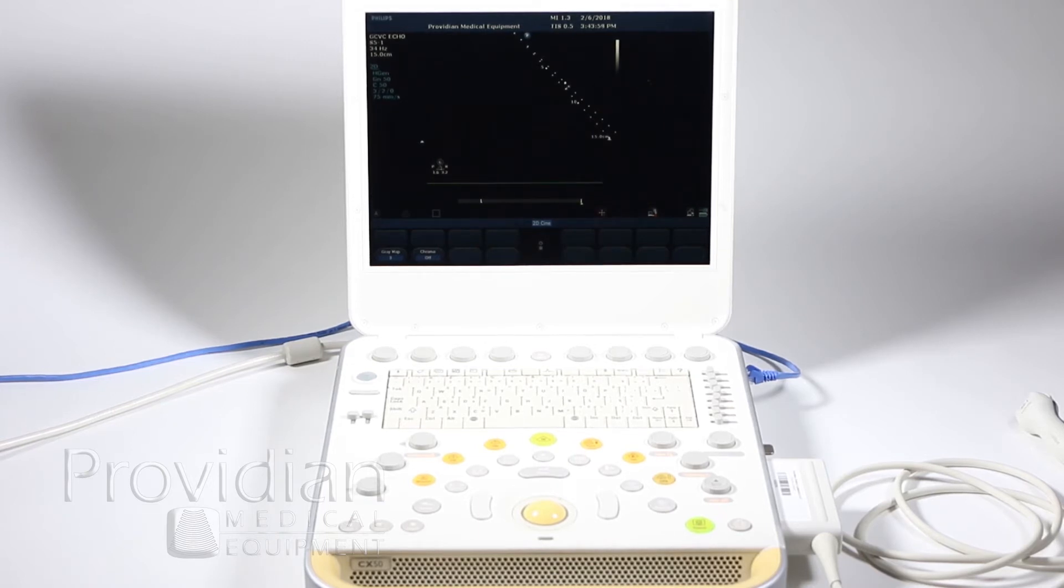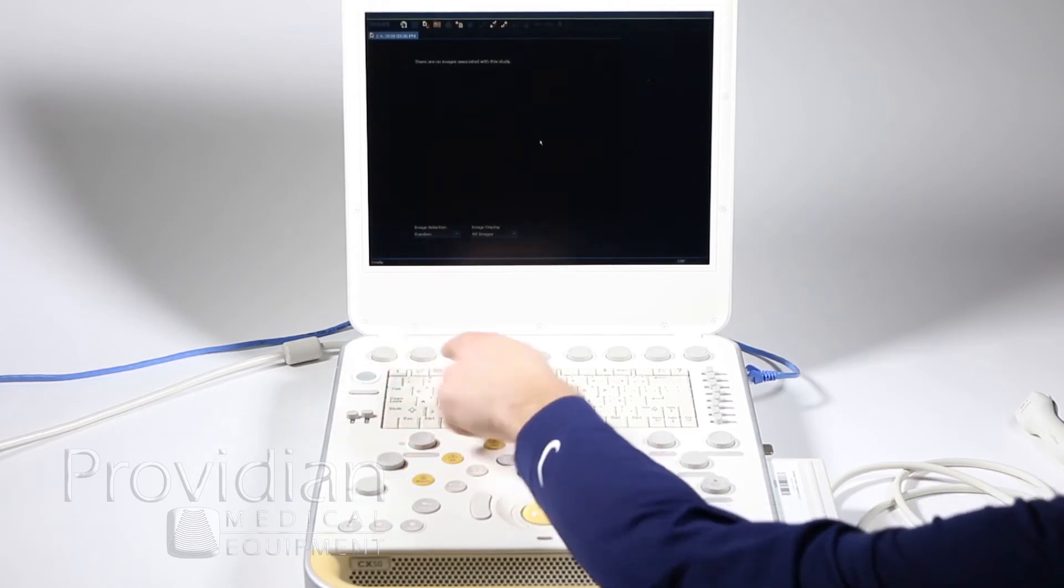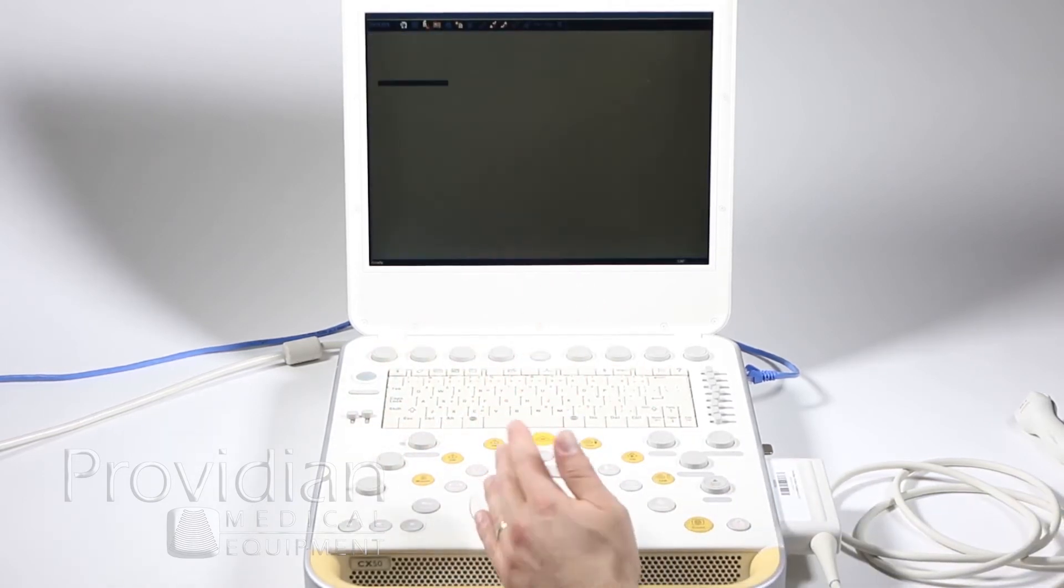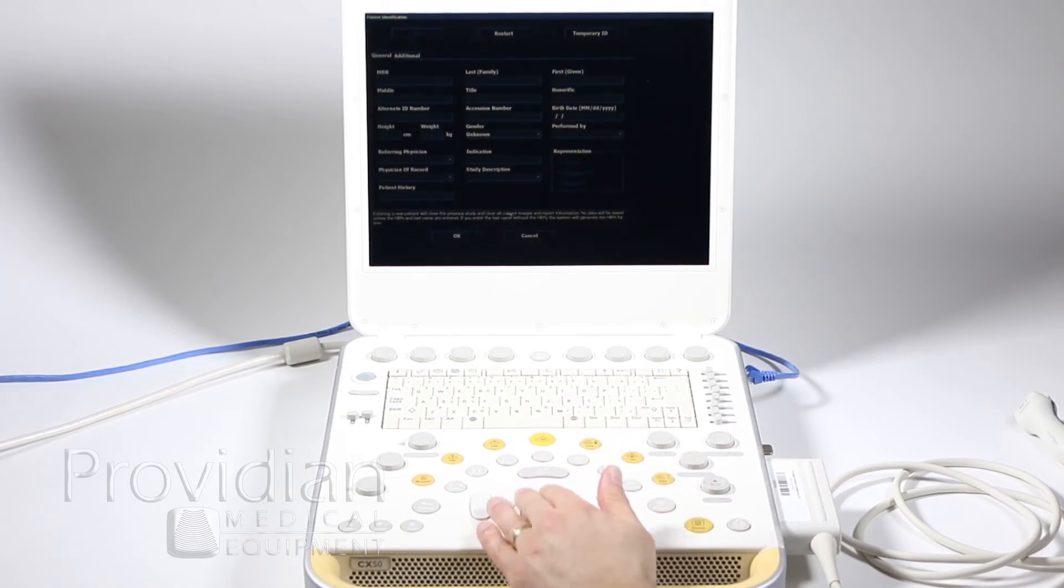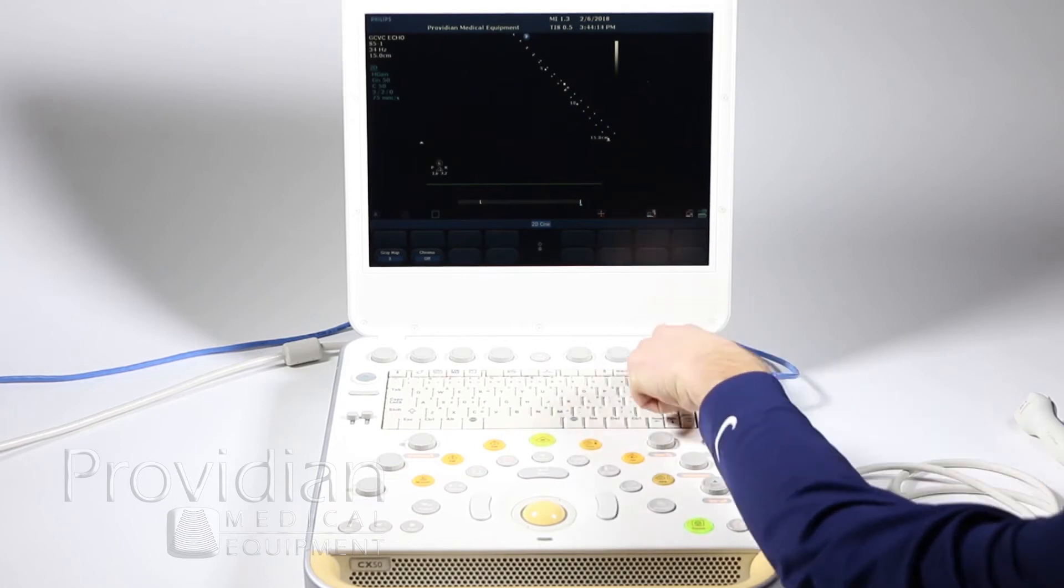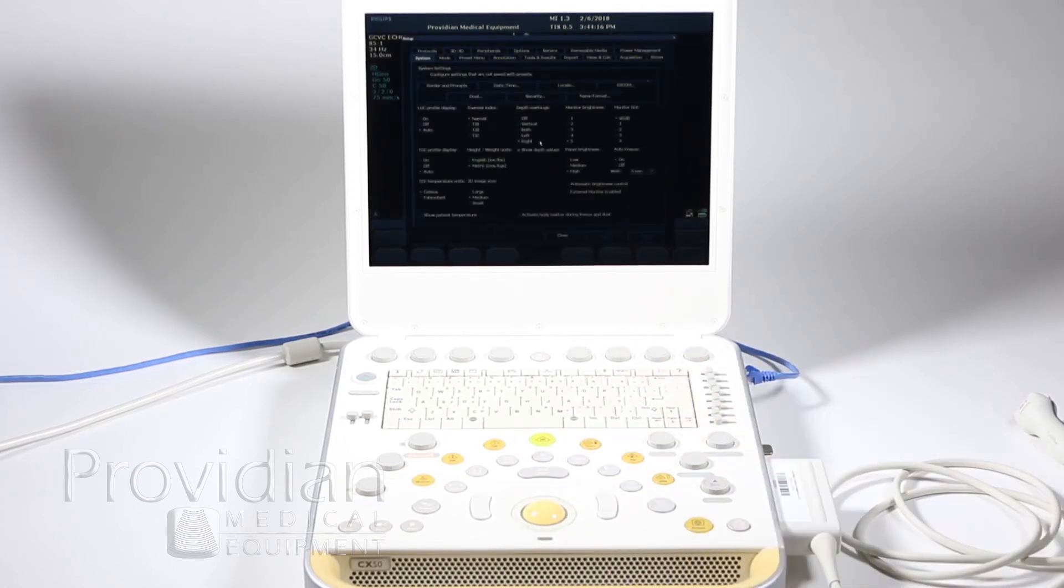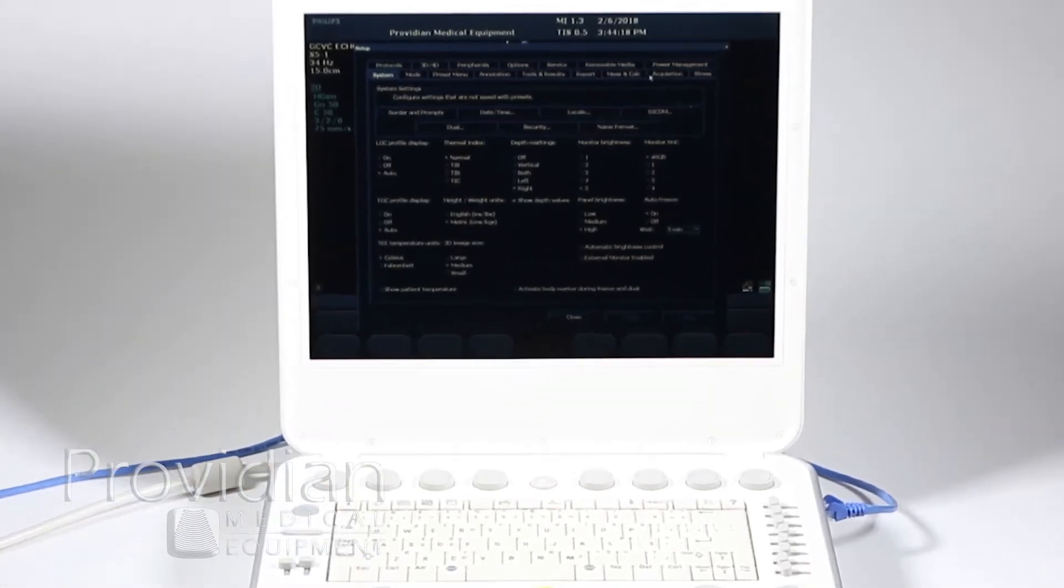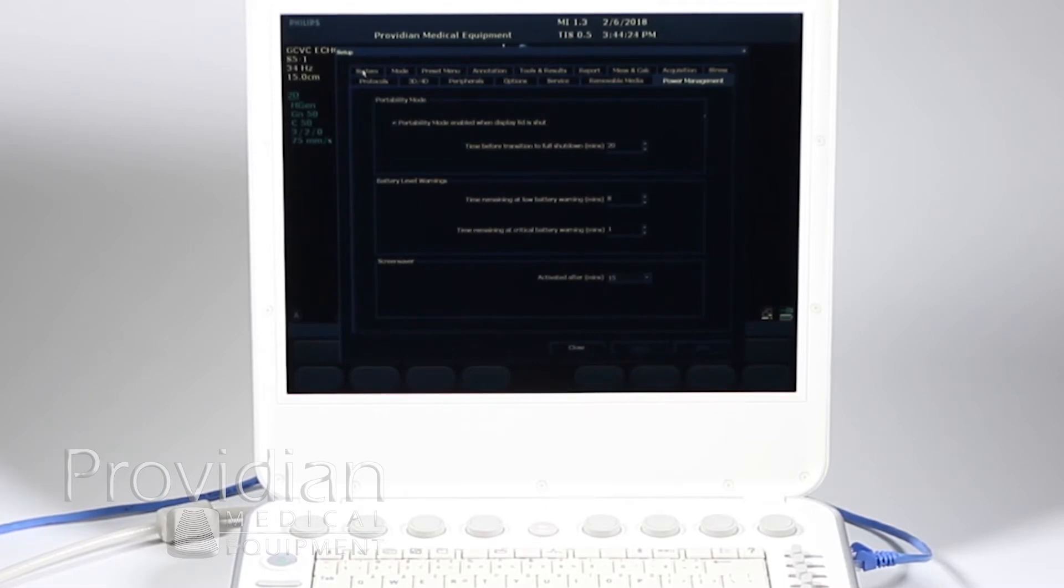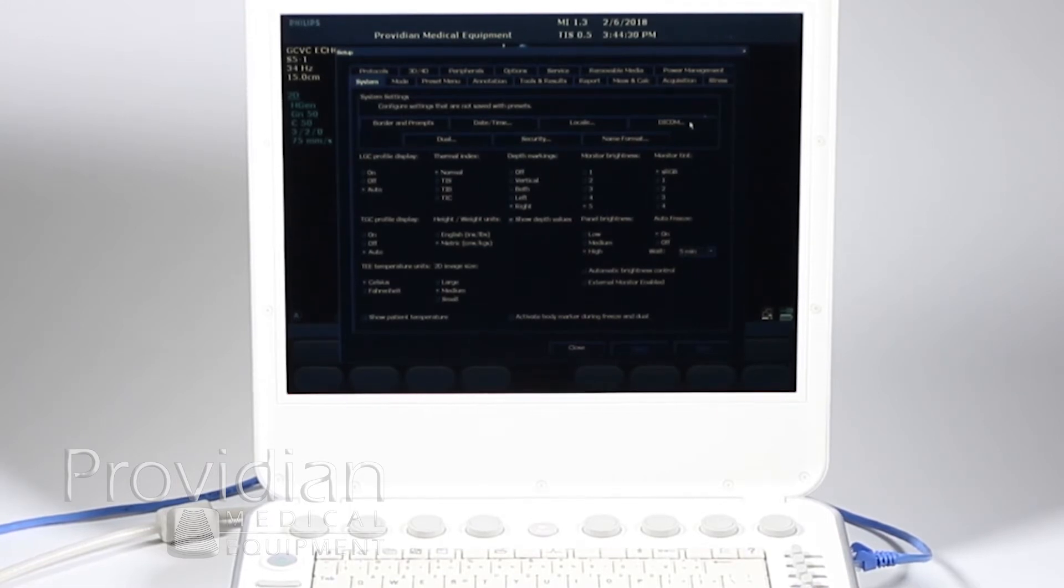Let's go ahead and get started. If you're in the middle of an exam, you'll need to go to review, click on end exam, and make sure that you're out of any exams. It'll go to the patient screen, go ahead and just hit cancel. Then next to this question mark, you're going to go back to that system setup. Make sure you click on system over here on the left-hand side.